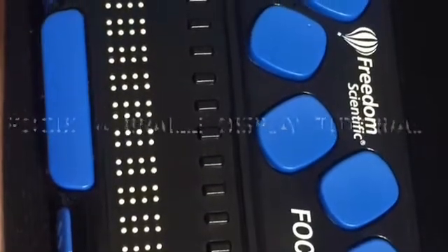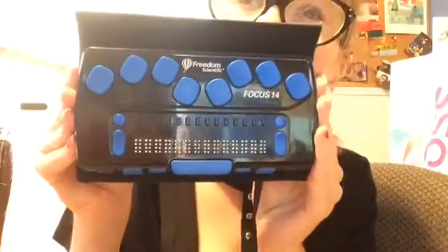Focus 14 Braille Display Tutorial. Hi everyone, Chelsea here. I got something really amazing in the mail the other day — I got two braille displays. This first one I'm doing a video about is called the Focus 14 by Freedom Scientific. It's about as big as an iPhone 7 and it has blue keys. Here's what it looks like. It's really small.